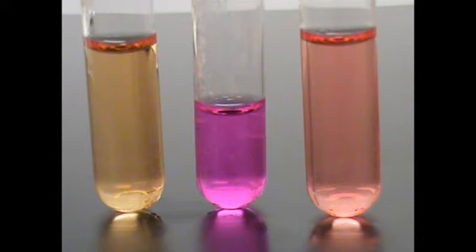Now shown is a negative urease on the left, a positive urease in the middle, and a weak positive on the right. There are a few organisms that are capable of breaking down urea rapid enough to begin overcoming the buffer. However, they will not produce enough alkaline conditions to completely overcome the buffer and cause the phenol red to turn the positive bright pink. These organisms fall somewhere in between rapid and slow urease production.